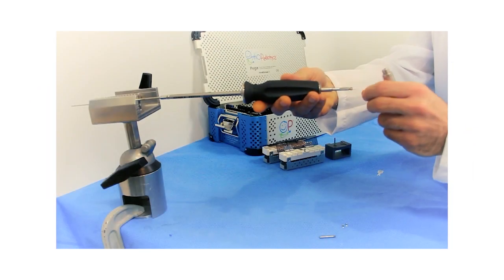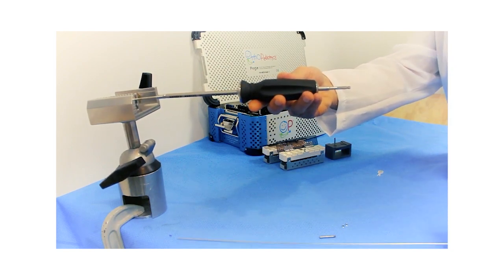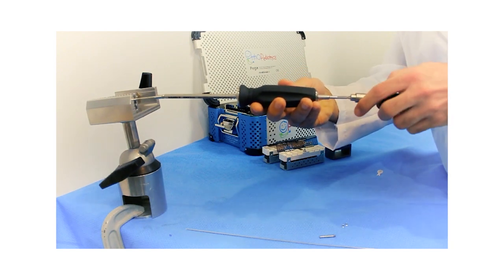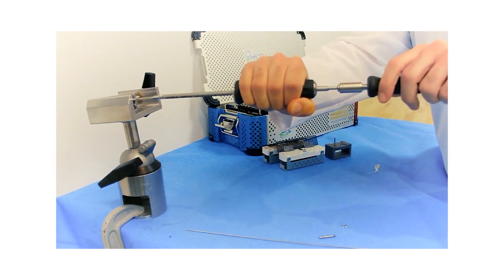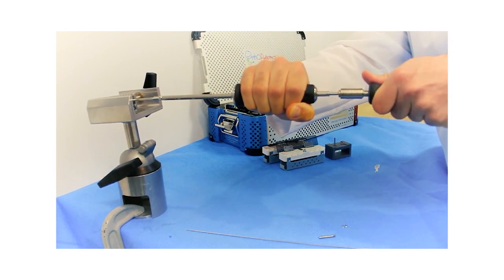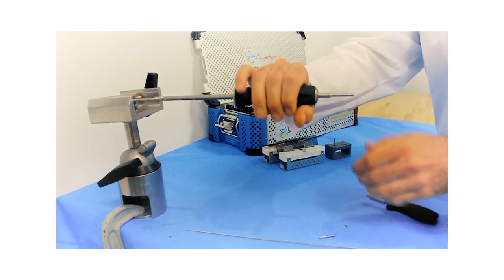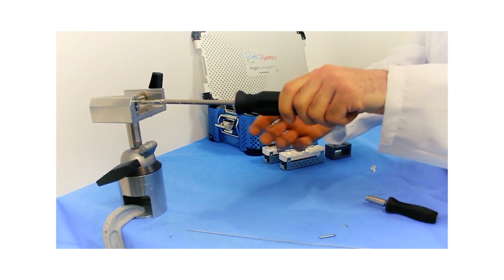At this point, if the wire is in the way, it can be simply removed, maintaining the alignment, and the torque handle is connected. This is a push connect handle. We maintain alignment, and then we torque until we hear the audible click, at which point the retriever handle is securely fastened to the implant, and we can unscrew and pull.